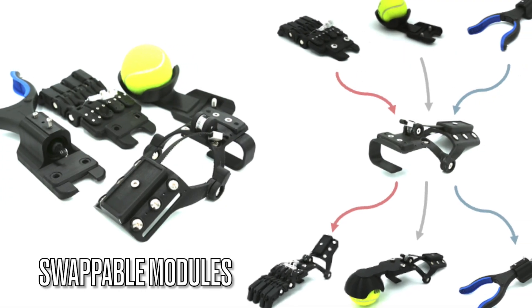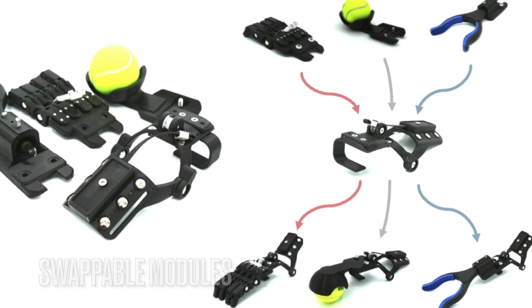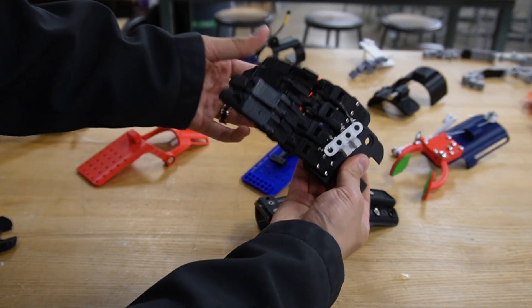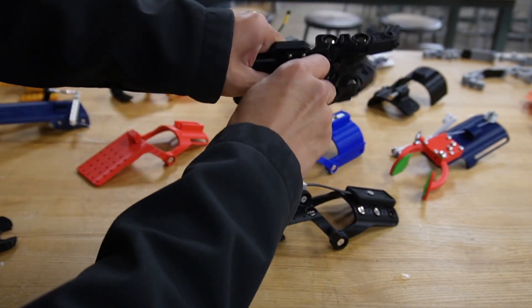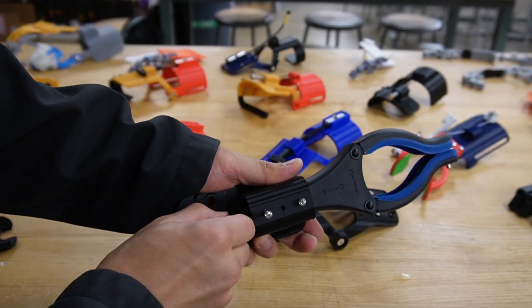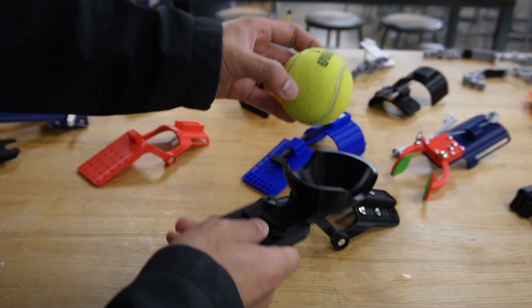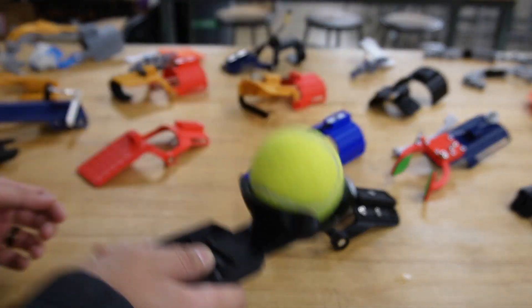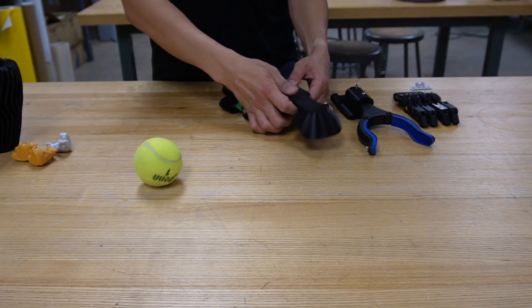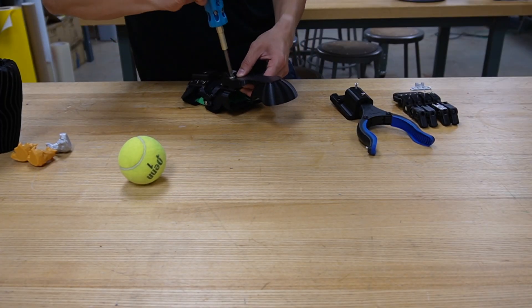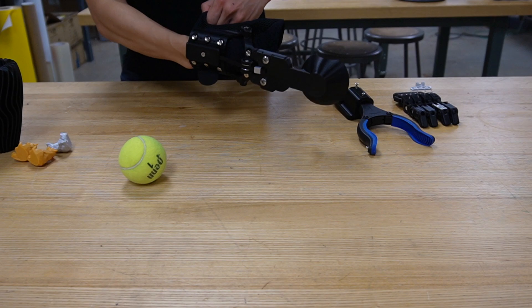Last one is swappable modules. Recognizing that users may need different functionalities for specific activities, we developed a swappable module system. Current prototypes require screws to secure the modules, but future designs will feature a quick-release mechanism for easy swapping.